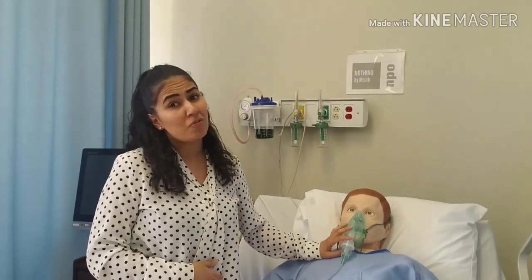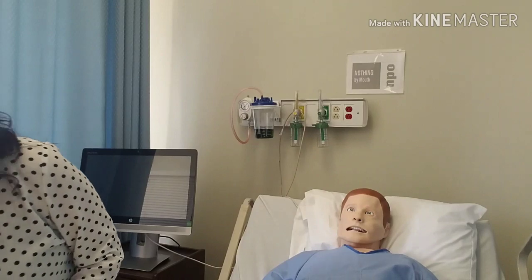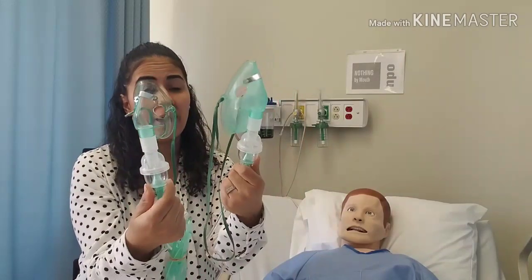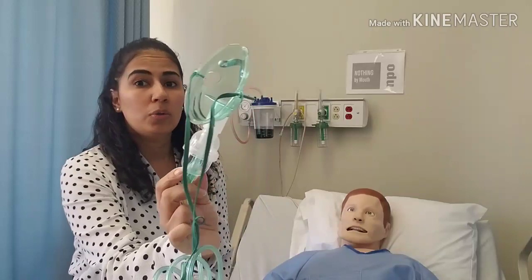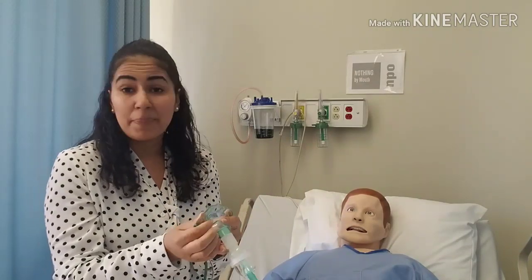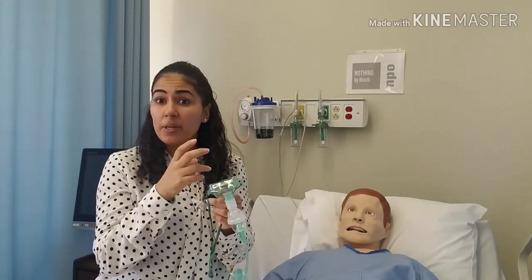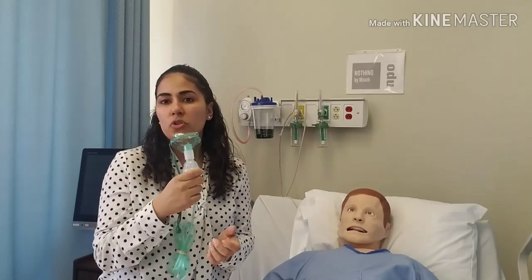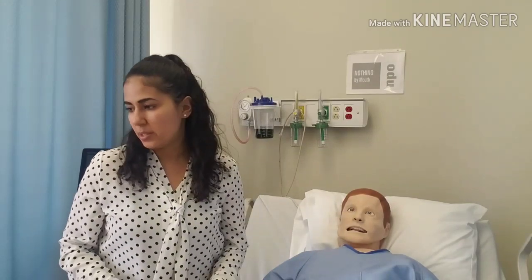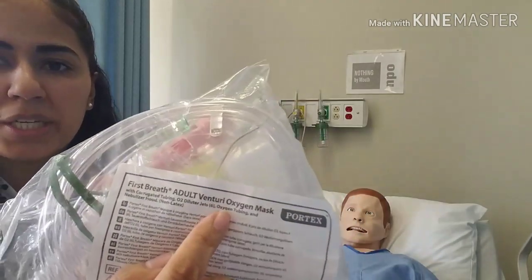Patients also have a mouthpiece option — a lot of patients at home use that. But in the hospital, most of these patients are very sick and it's difficult for them to hold it, so we put the mask on. Choose the appropriate mask size based on your patient — pediatric versus adult. For pediatric patients, sometimes you use a blow-by technique where you just hold it near their face if they won't keep it on.